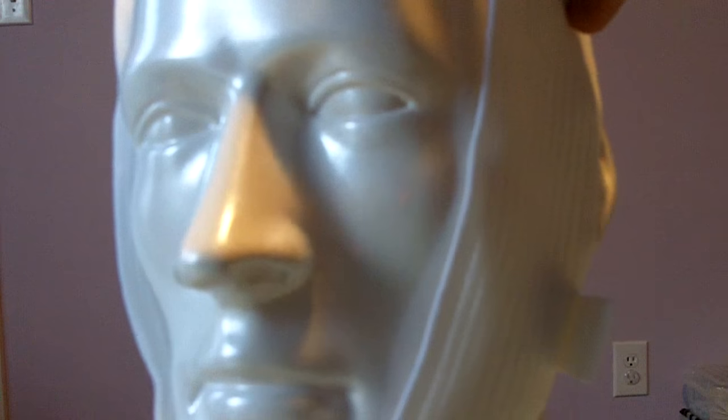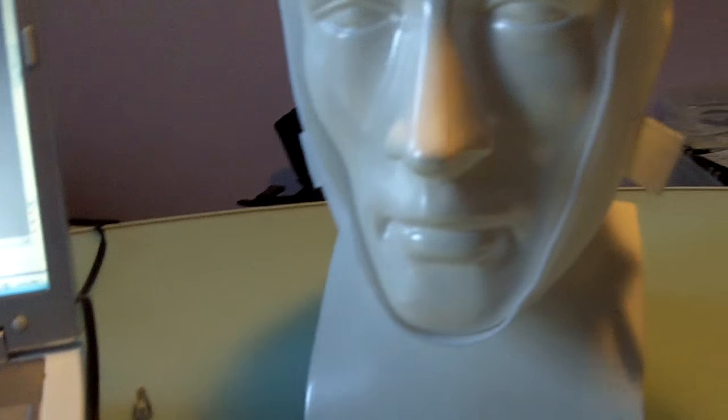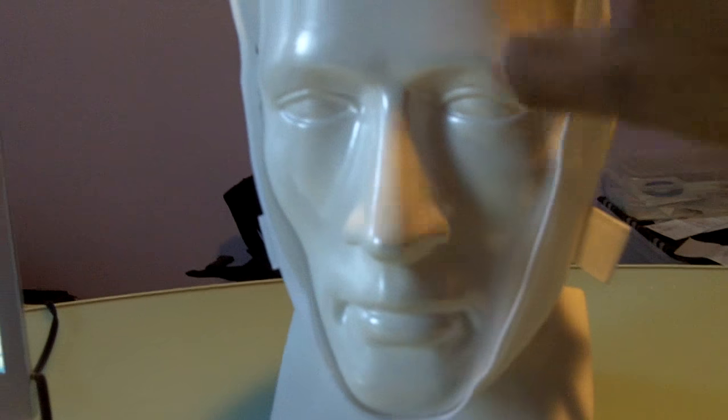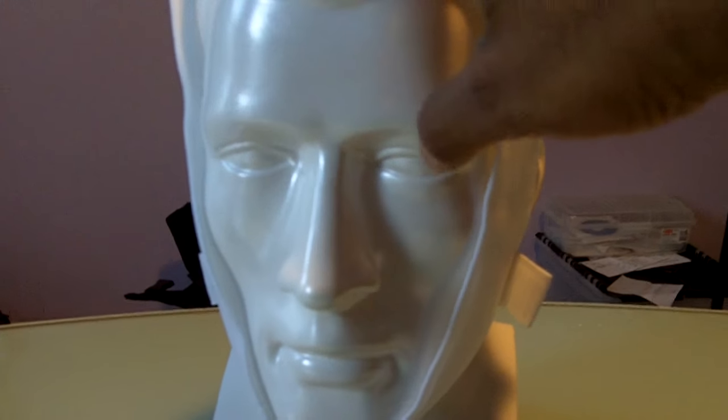It goes, let me put this camera down, right here. It can cover and touch the voice box. And for some people, it presses on them and feels like a choking sensation. So if you have a small face, please don't use this.